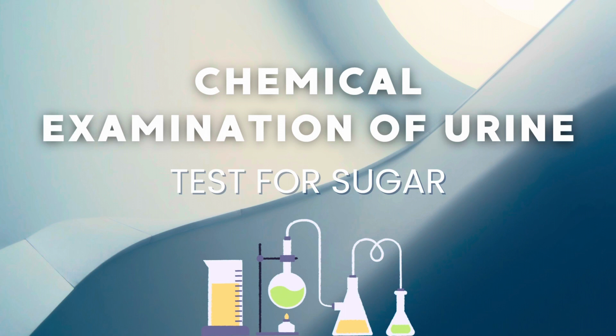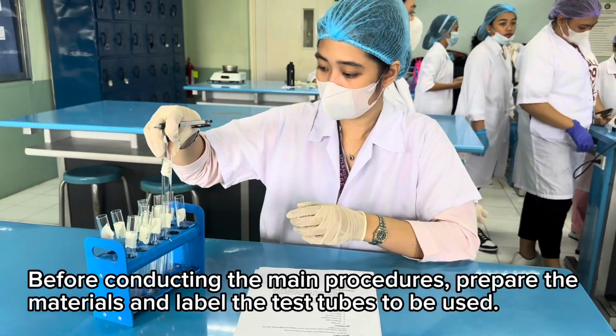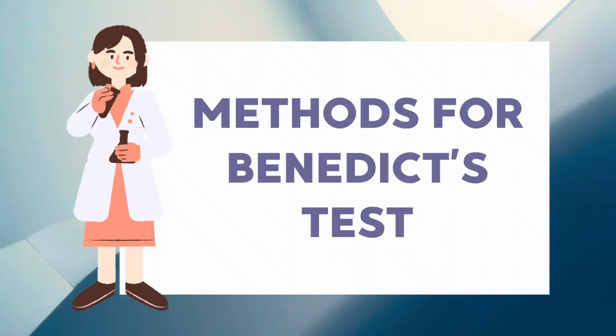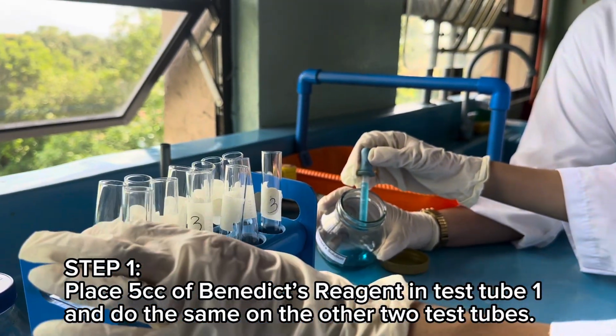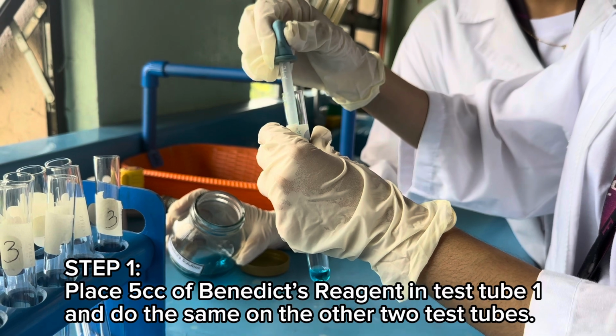Chemical examination of urine. Test for sugar. Before conducting the main procedures, prepare the materials and label the test tubes to be used. Methods for Benedict's test. Step 1. Place 5 cc of Benedict's reagent in test tube 1 and do the same on the other 2 test tubes.